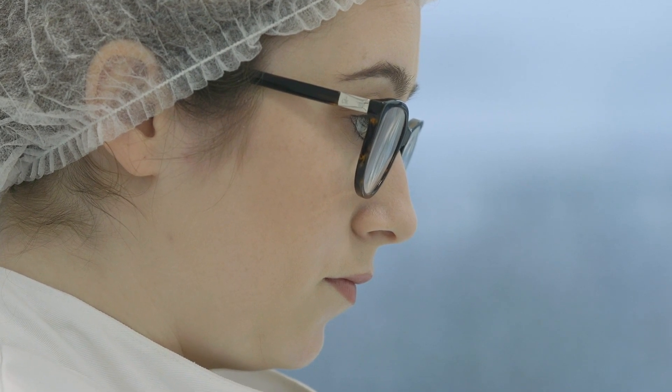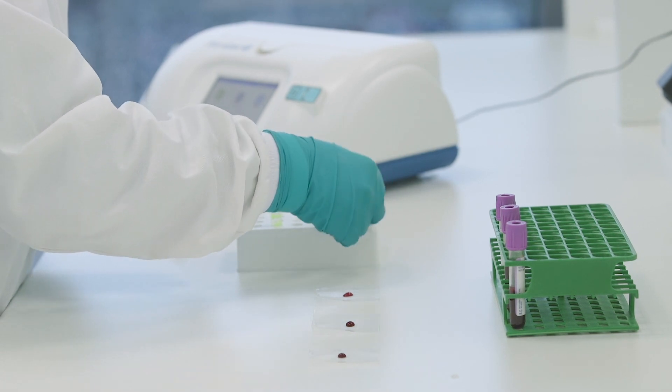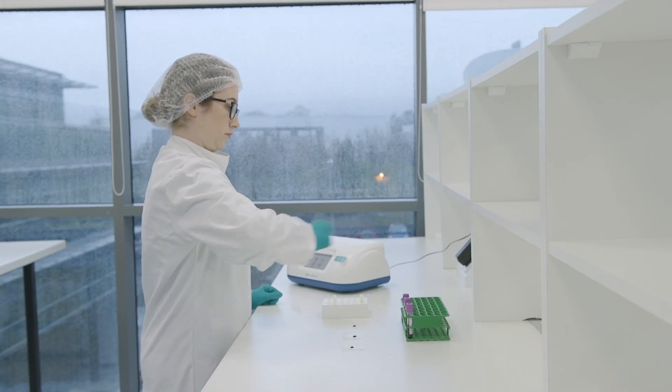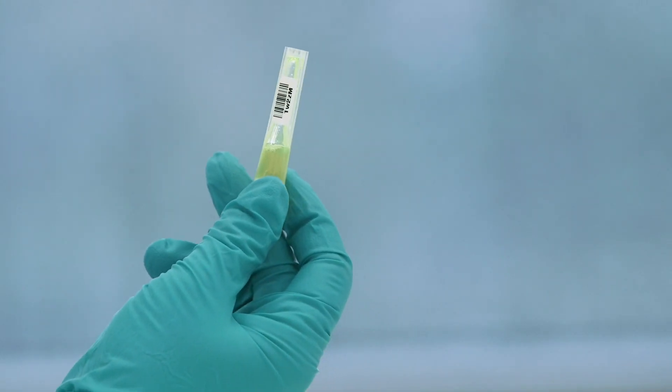With the tip down, carefully place on the reagent tube with the capillary downwards. Hold the top and bottom of the reagent tube and shake 10 times, ensuring that the sample has mixed with the reagents and the gel has come off the bottom of the tube.